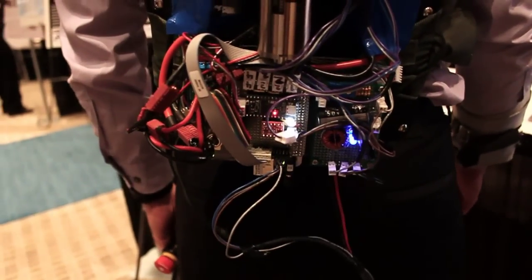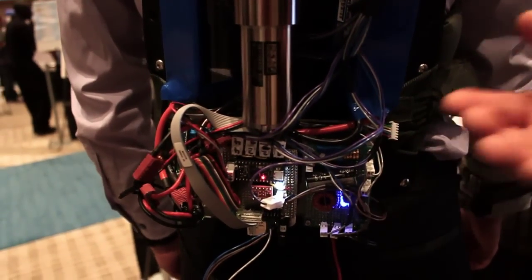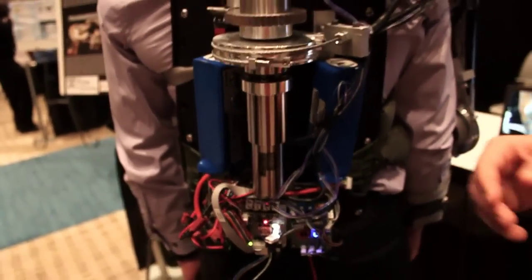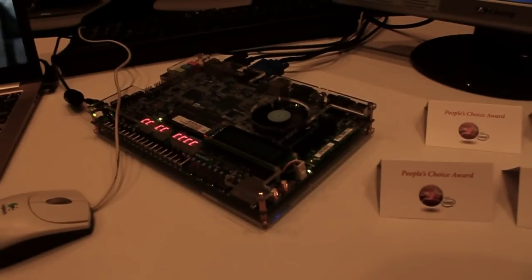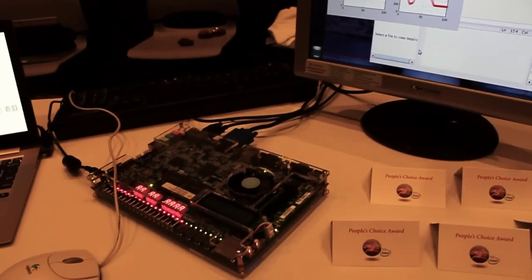You've got a BeagleBone on this thing? Yes, a BeagleBone microcontroller does all the heavy lifting — it runs the main control loop and takes input from the joystick. It talks with an Atmega32-based microcontroller that acts as a buffer between our $90 BeagleBone and our $700 high-power, high-voltage motor. That handles the 5-volt logic system going to our motor driver board, which controls the pulse width modulation. It also sends data wirelessly to our Intel DE2i base station board, where we send packets over UDP to MATLAB to log and plot data in real time — useful for physical therapy monitoring.